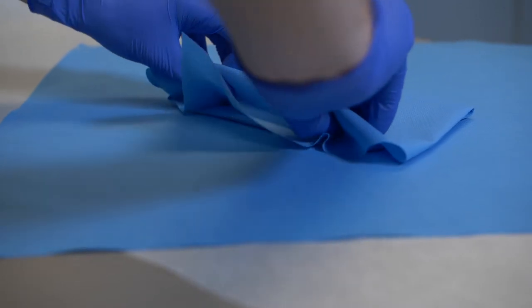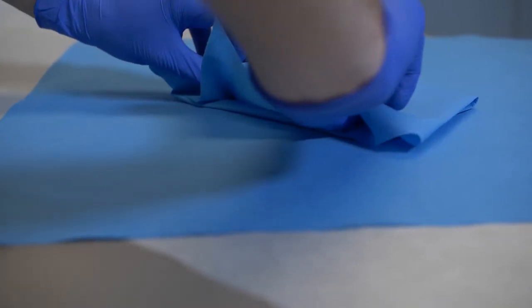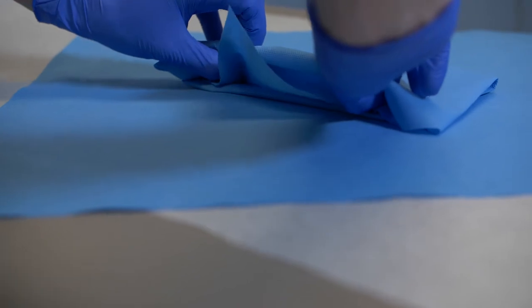Fold the last tip up from the bottom. Fold the top edge down and over the entire package.